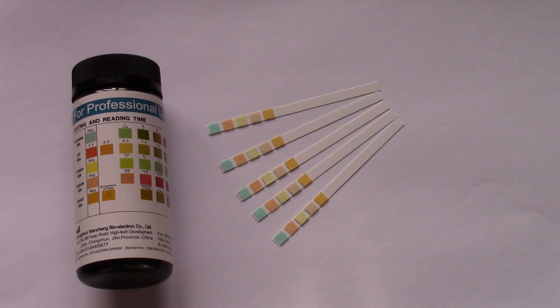They've also got the ketone test pad on there, so once diabetes is developed they're ideal for people that are on either dietary control with tablets or insulin control, where they're wanting to make sure that they are not excreting any ketone bodies and having high levels of sugar.